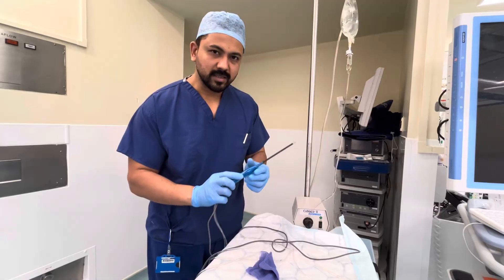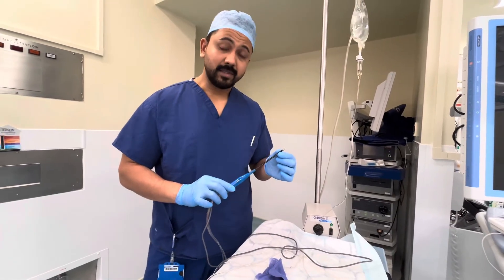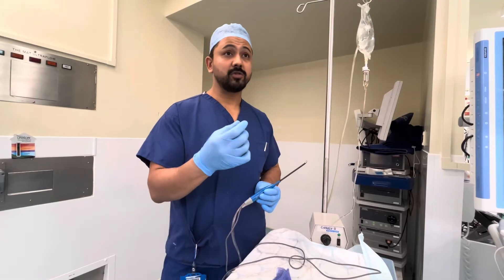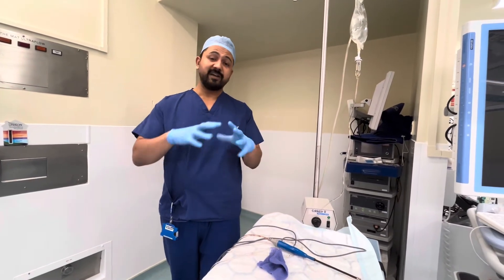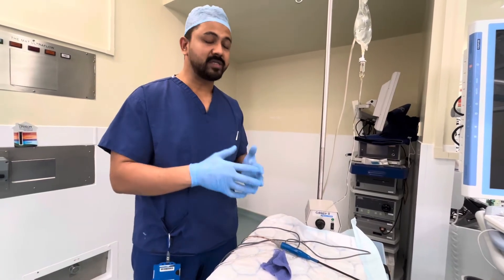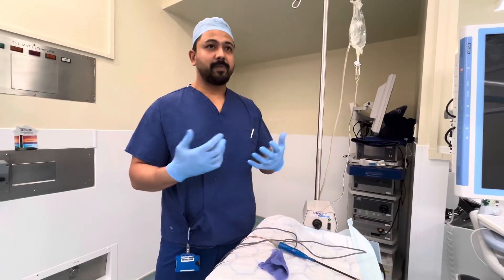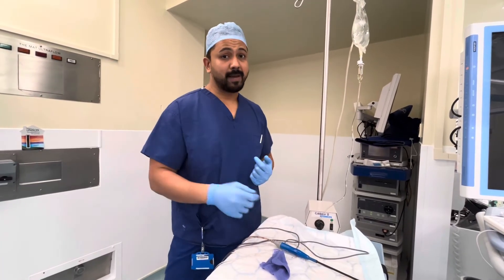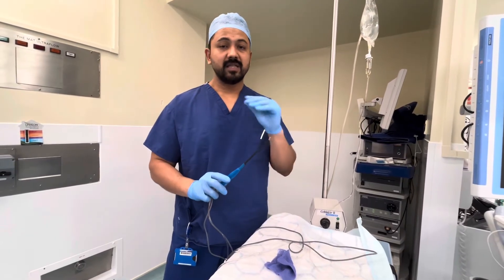So why are we using this? Less burning — that is less post-operative pain. When we use bipolar, like in bipolar tonsillectomy or in nose surgery, it will char the surrounding tissue as well, which will result in post-operative pain. The kids or the patient, when they wake up, they'll experience more pain when we use bipolar. As against, with this, the pain is minimal.